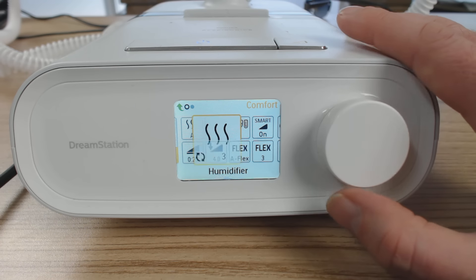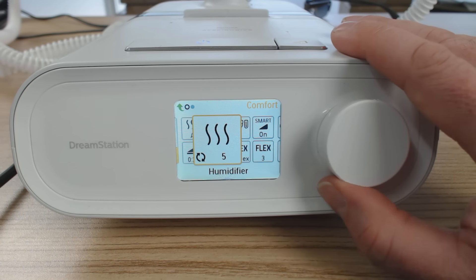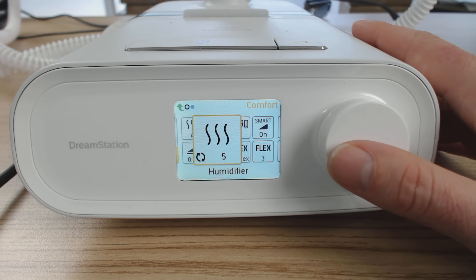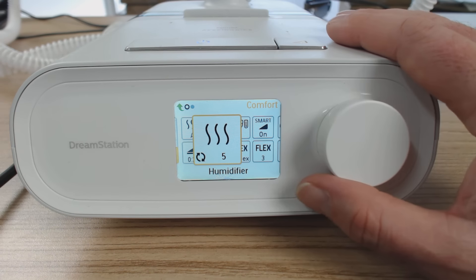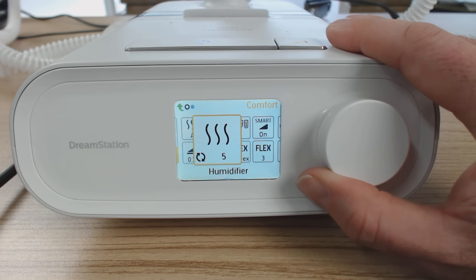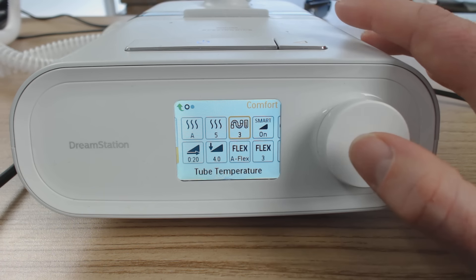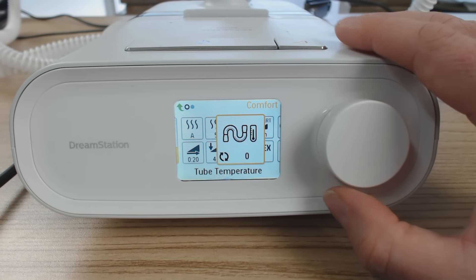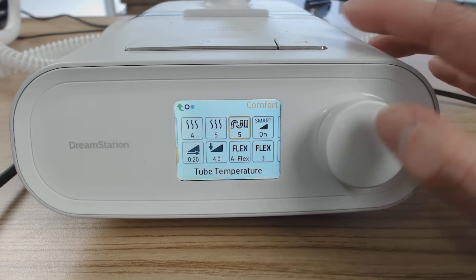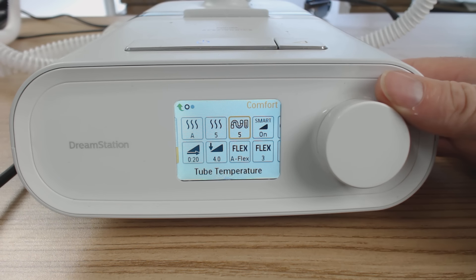The next one is the humidifier level. This can run between zero — which is off, no humidification — and up to five, which is maximum humidification. The more we go up, the more moisture is going to be in the air. You can also change this in patient settings. If you're dry in the throat or parched in the mornings, you might need more humidification. If you're getting a lot of condensation or rain out, you might want to bring that down. Next, we've got the tube temperature, which runs between zero and five — the higher the setting, the hotter the tube gets. The heated tube is very handy because it resolves condensation and rain out issues, especially at high humidification levels.